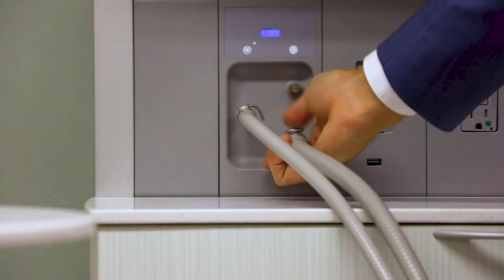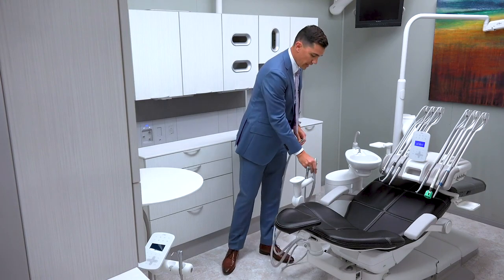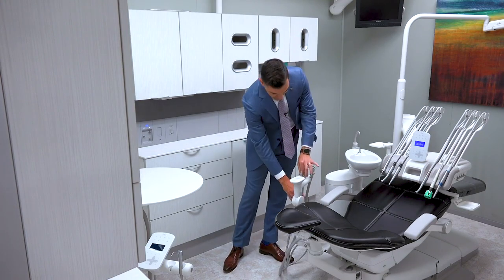Once you are done, you can close the valves themselves, take them off of the ICV, and hang them back up in your assistant hanger valves.